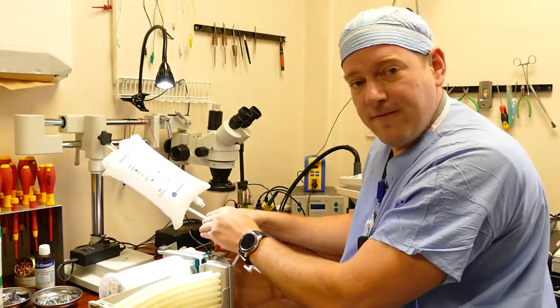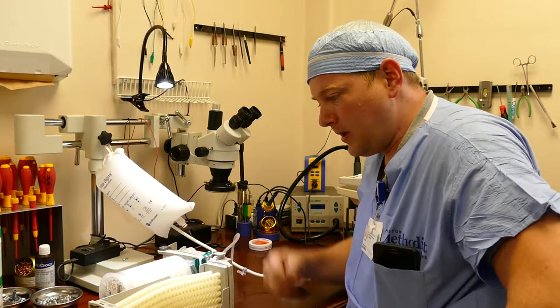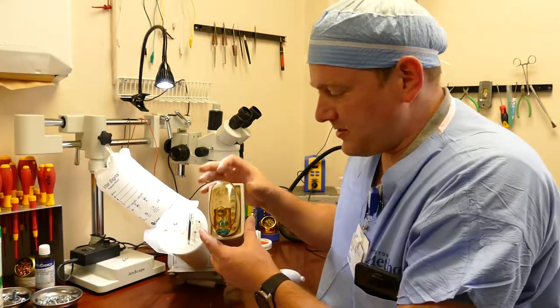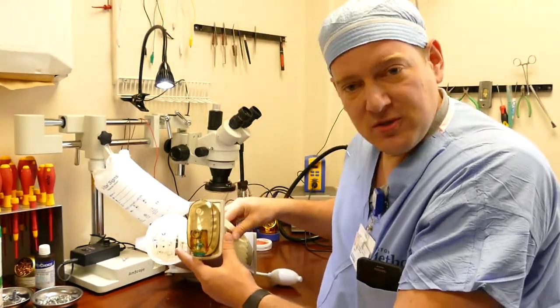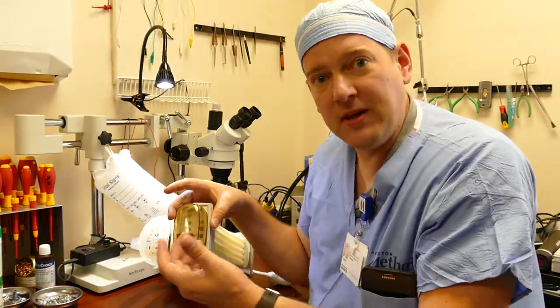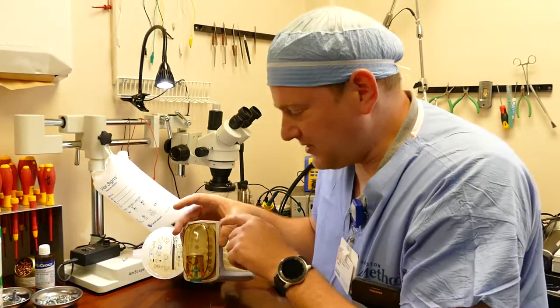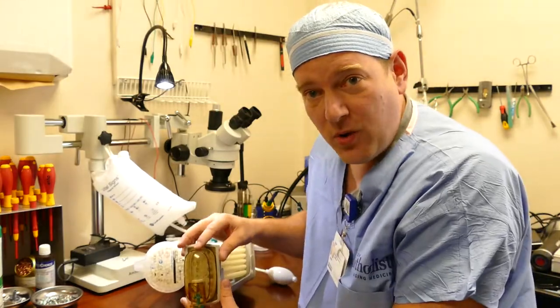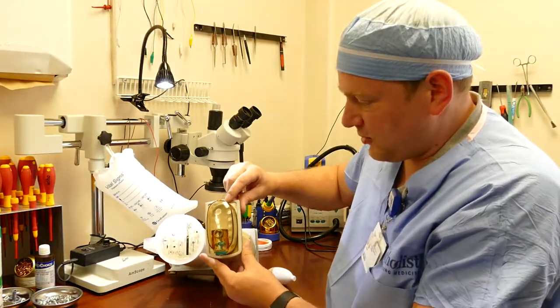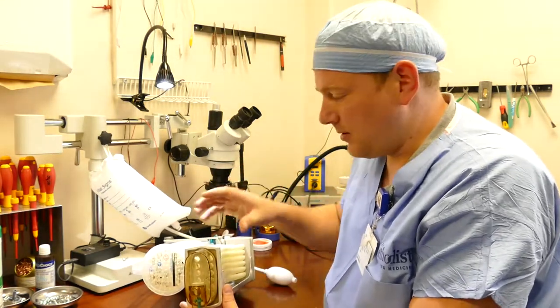You can see how fast it leaks based on how fast the scale goes back inside the housing. When I started pressurizing this unit I could hear a little hissing down here at this end. This is the moisture trap for the moisture separator and it's got a relief valve that you normally will empty out at the end of a long case — there'll be a bunch of moisture in this reservoir. There's a little hissing right here at this lip seal. This plastic reservoir is held in by a silicone seal, and you can see it right here — it starts to bloat because I have 150 millimeters of mercury pressing on it.